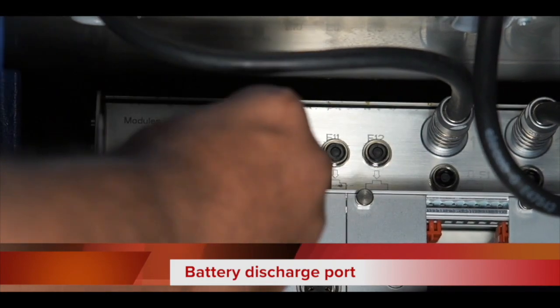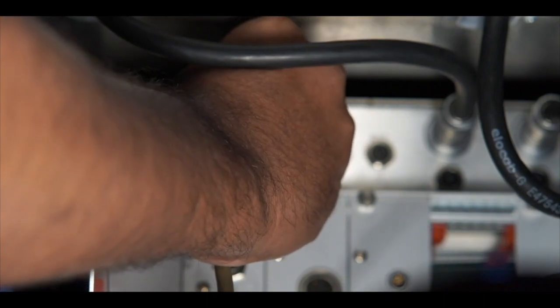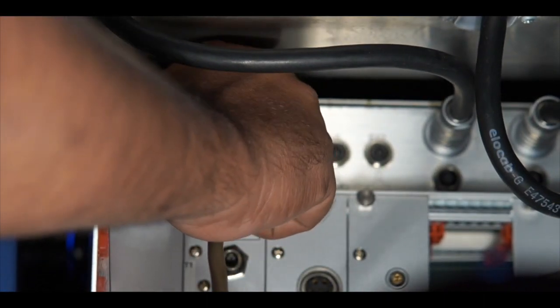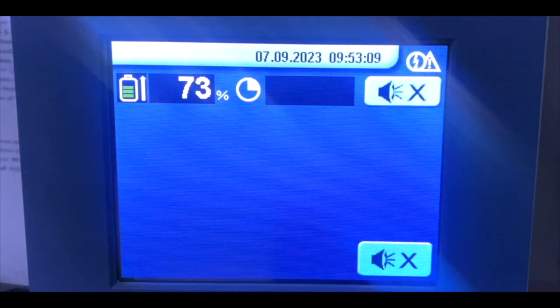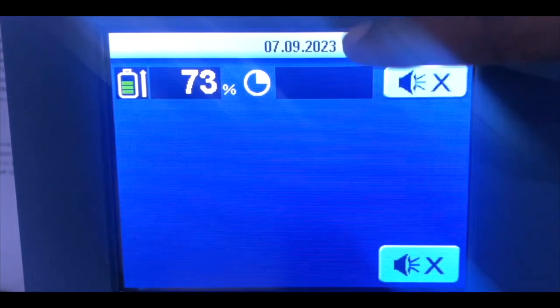Once it's done, go to the fourth display of the heart-lung machine where all information is there. On the top of the screen, press once and you will get the option of volume, BSA setting, and system setting.